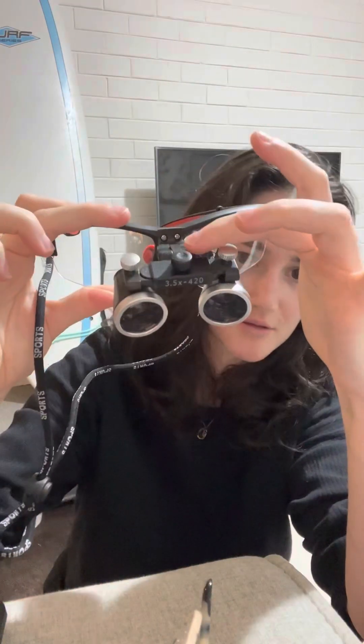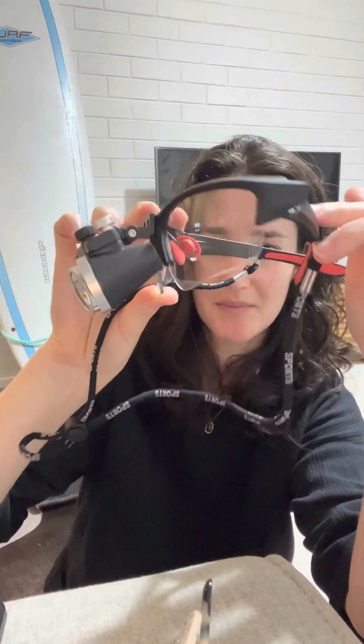The way that they work, you just rotate them until you basically stop seeing double vision. There's not really instructions on how to calibrate them, so you just kind of put them on and wiggle them around until it seems clear. I think that for long-term use, there are probably some issues there in terms of your eyes overcompensating. I'm not an optometrist — my sister is, she'll probably grill me after this. But they don't have prism, which I do know helps assist convergence and takes a bit of the effort away from your eyes having to always look in at a certain close point. So these don't have prisms, but quite a lot of the more expensive loupes do.